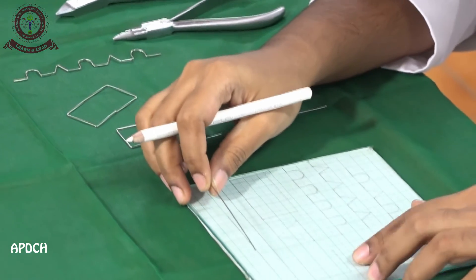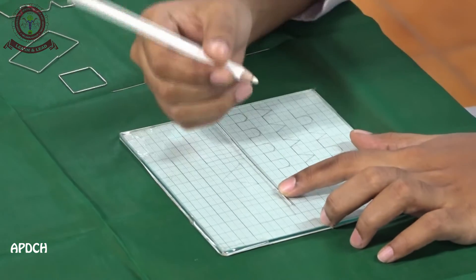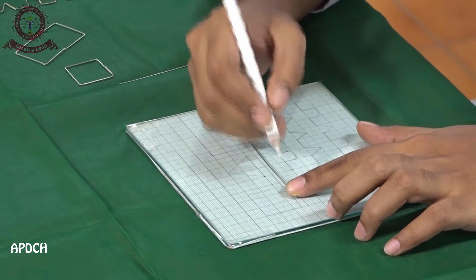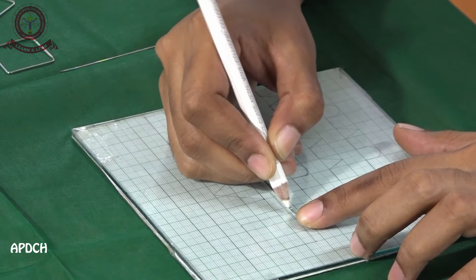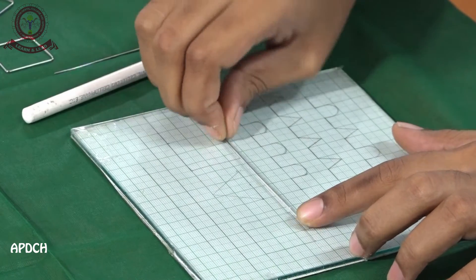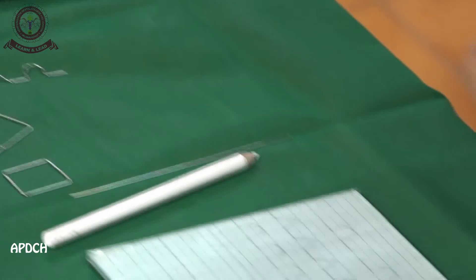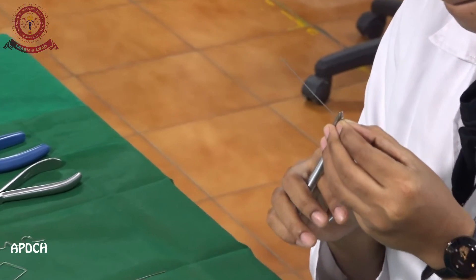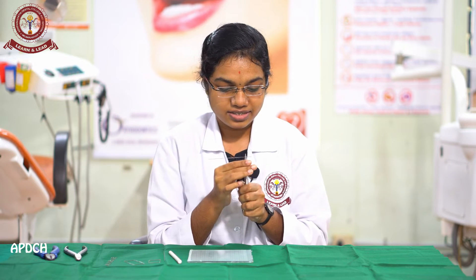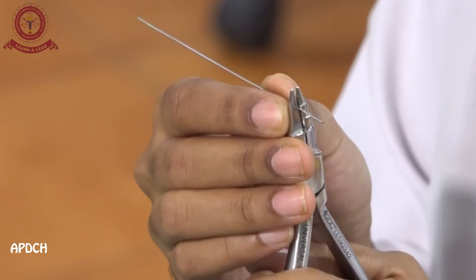First we are going to see how to make a perfect square. With a glass marking pencil we have to mark the exact point where the 90-degree bend angle is given. Then with the help of the plier, hold the wire at the exact point where the bend is to be given. Now we have to turn the plier, not the wire.